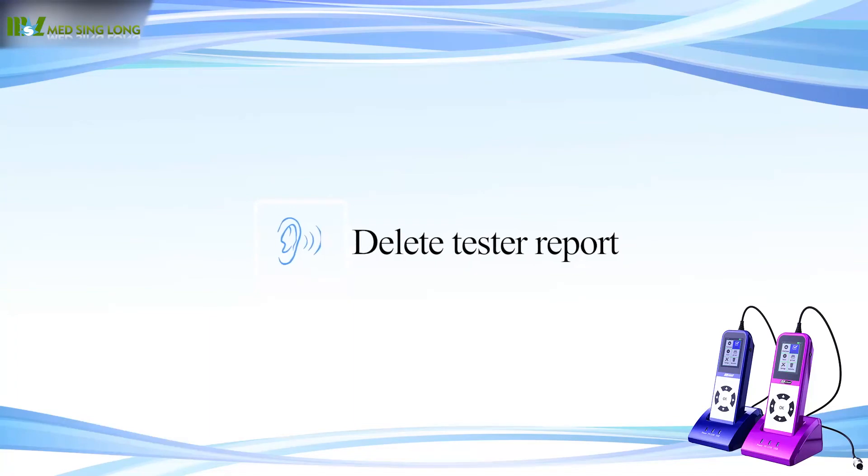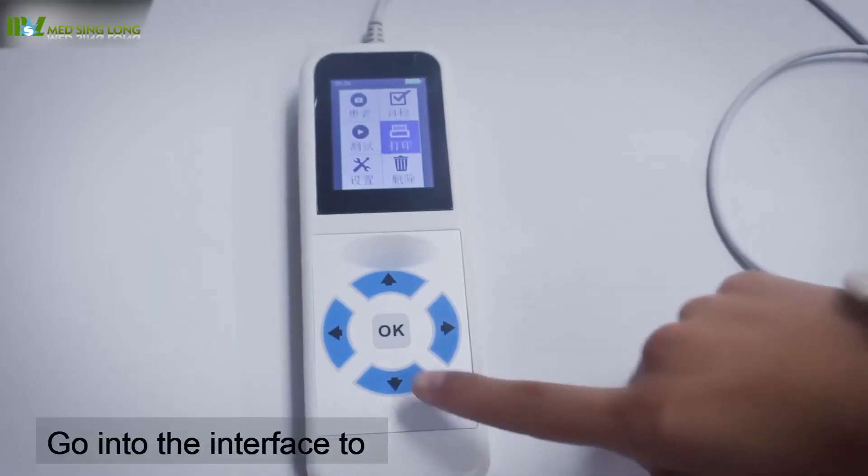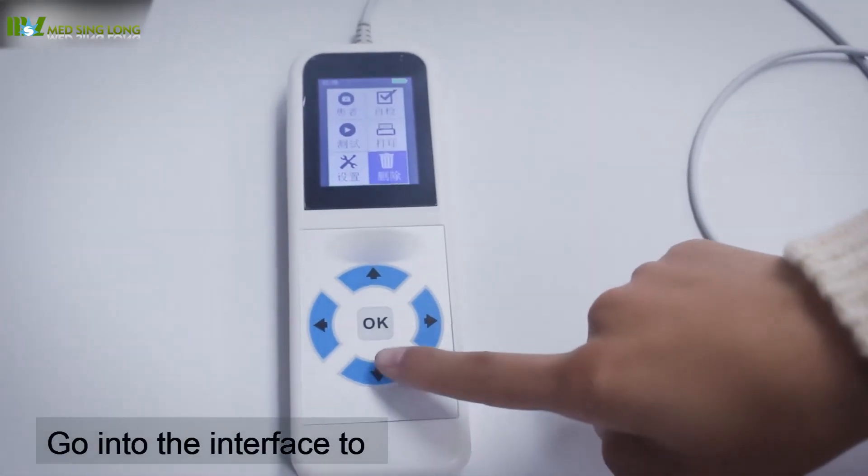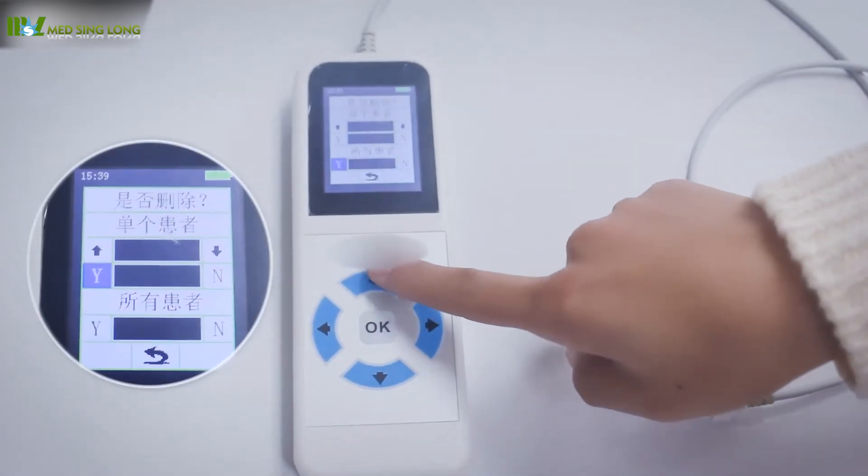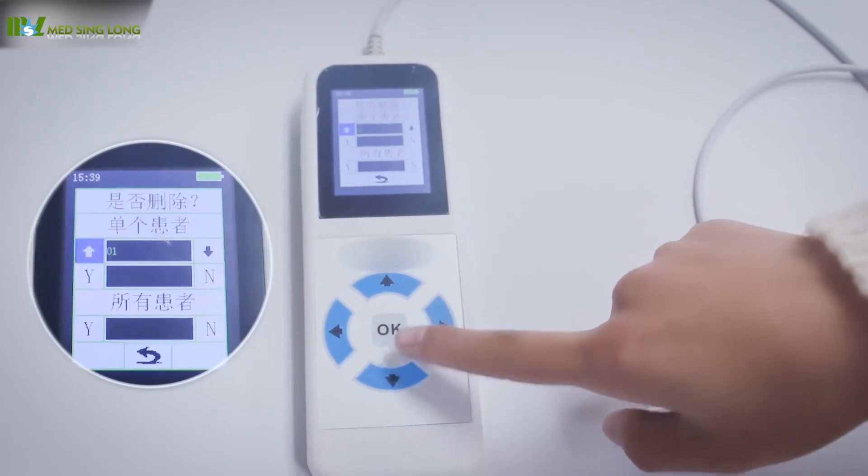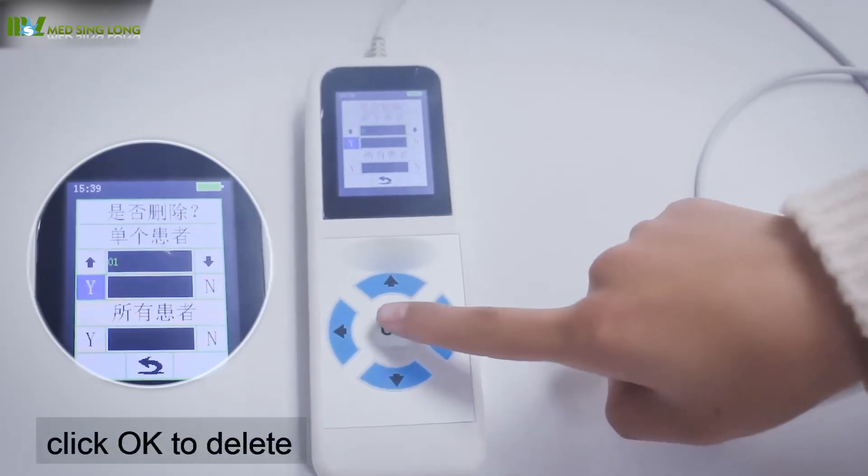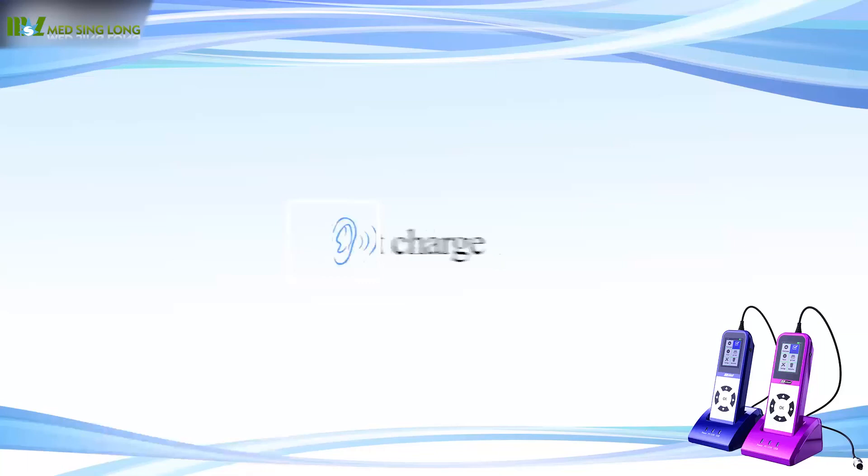To delete a tester report, go into the interface to select the number which needs to be deleted. Click OK to delete.